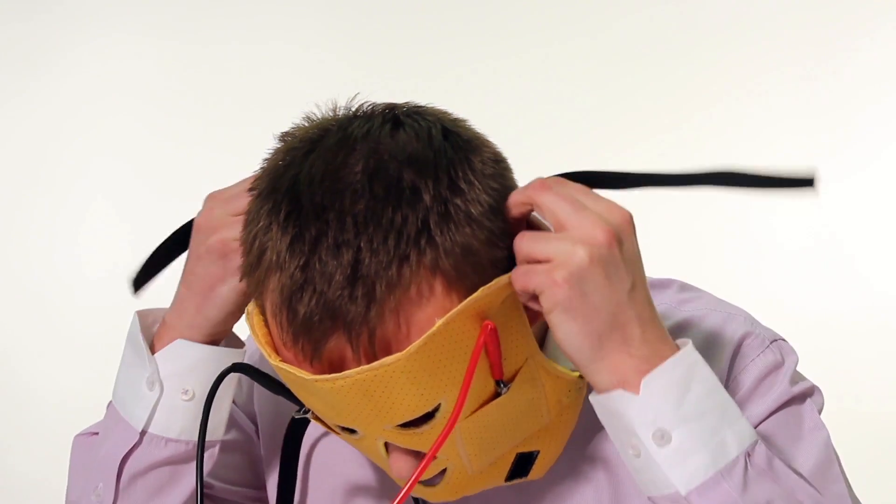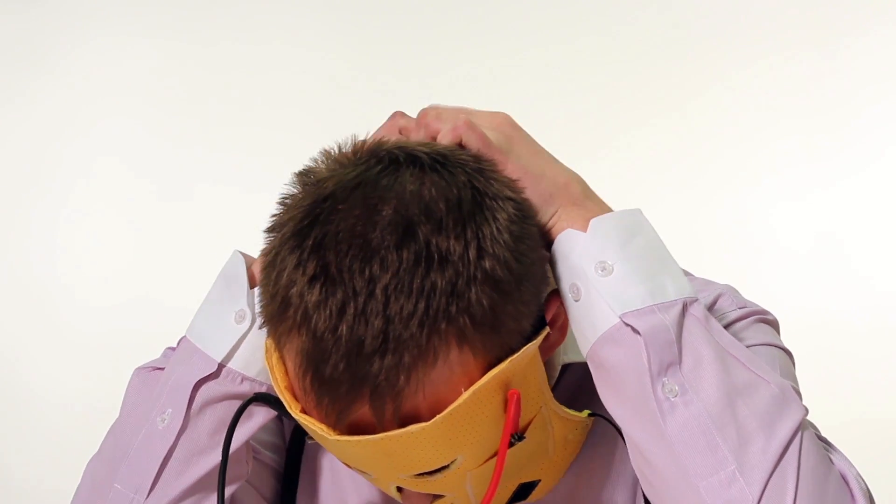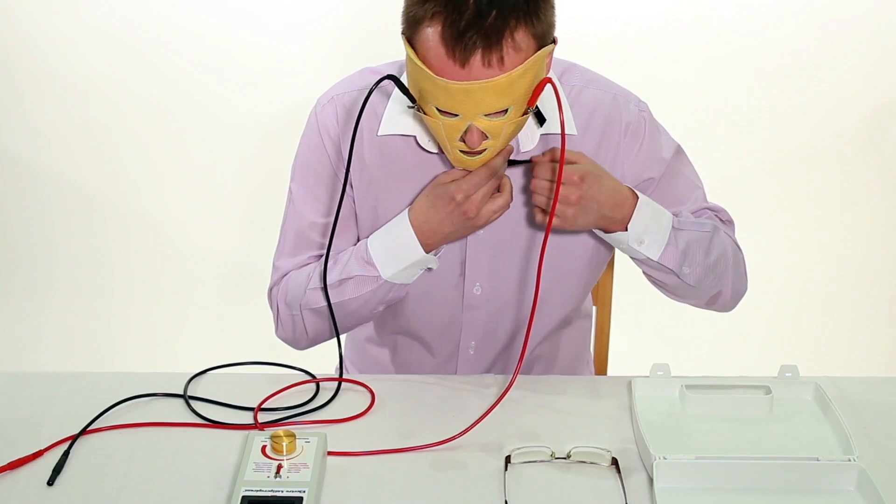Then put the electro antiperspirant face mask on your face and attach it to your head using straps so that it fits tightly.